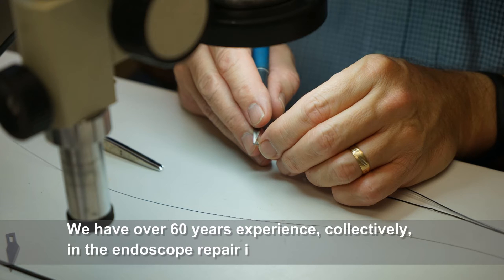We have over 60 years experience collectively in the endoscope repair industry and are offering entry, intermediate, and advanced level training.